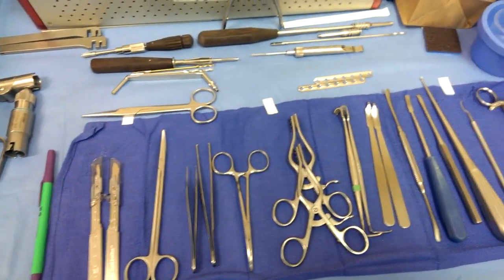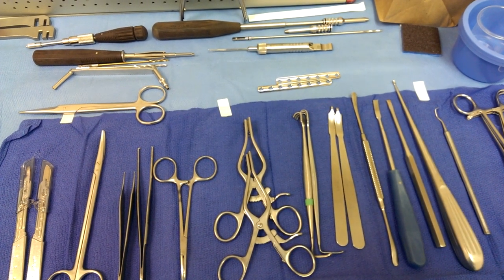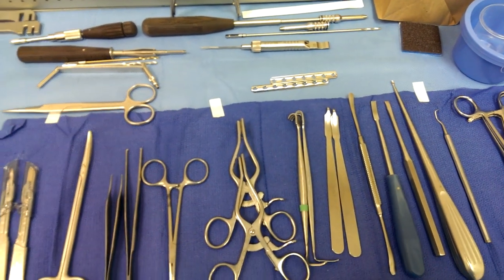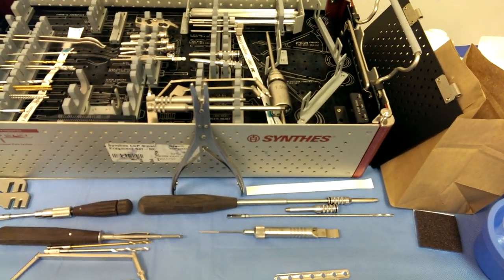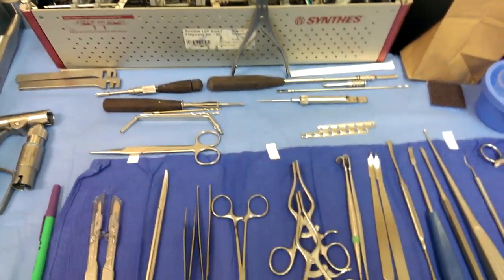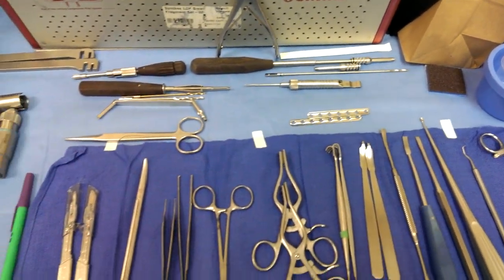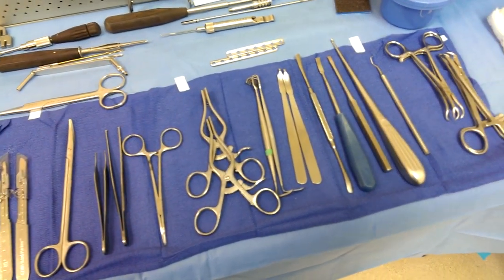I also have the plate benders in case you need them. I anticipated two plates — I pulled out a 2, 4, 6, 8-hole and a 7-hole ready to go. And I loaded my torque limiter — it's right there if you can see it. And the sleeves for the cannula. So I'm pretty much ready to go. I don't have to dig in the tray too much because I anticipate basically what they're going to use.